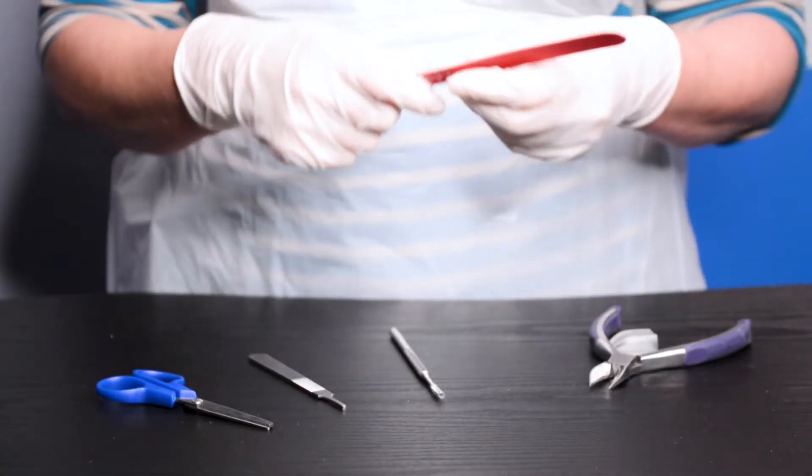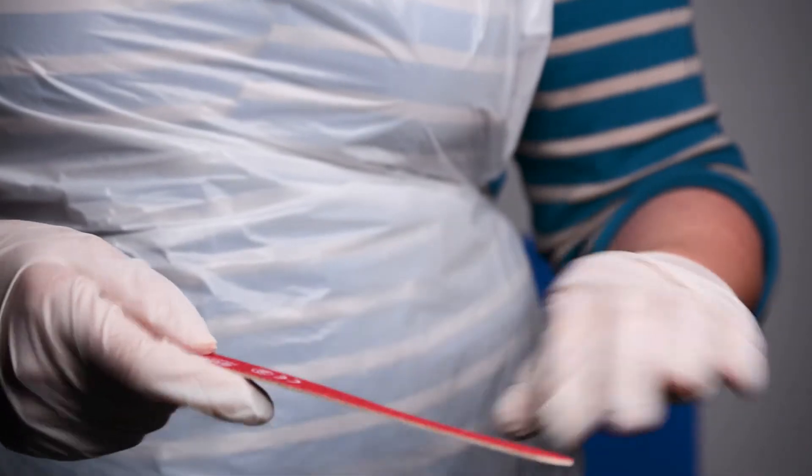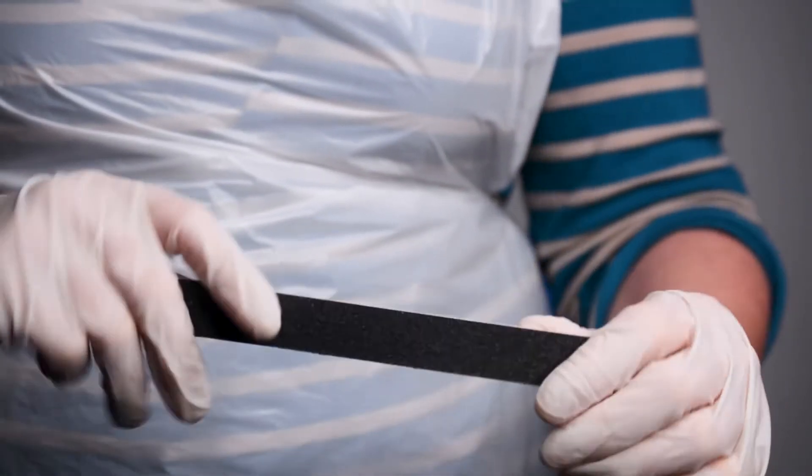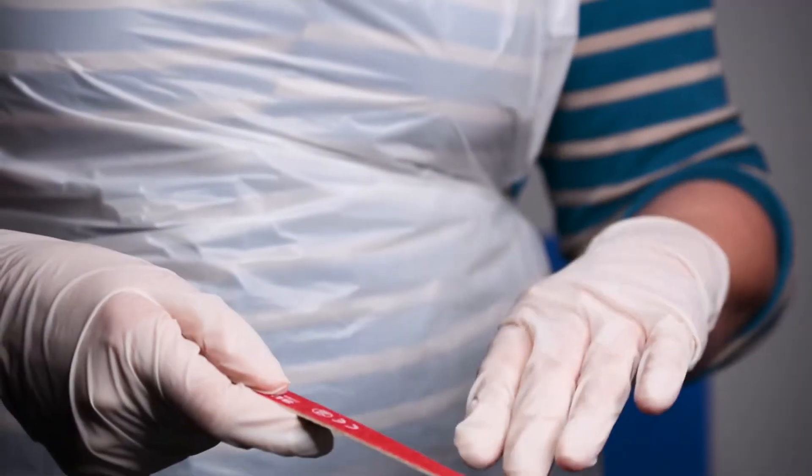The emery board is made from reinforced wood fiber for durability with two grades of cut: medium and fine.